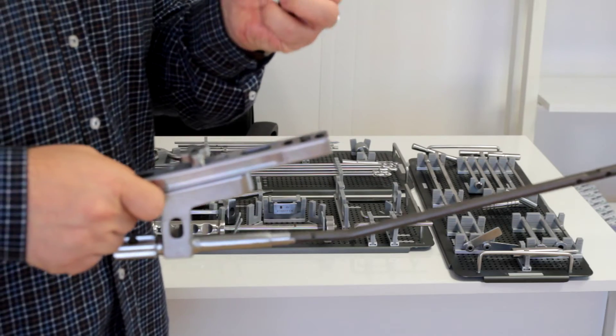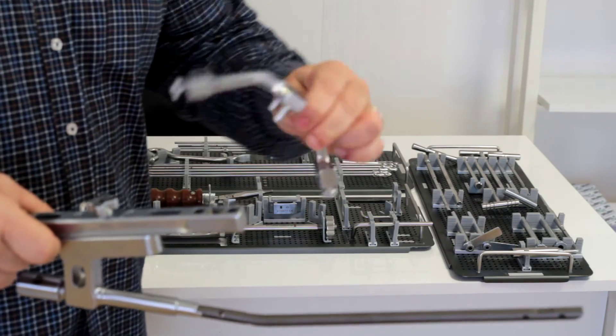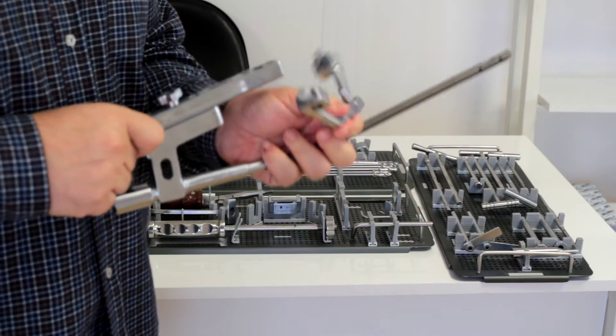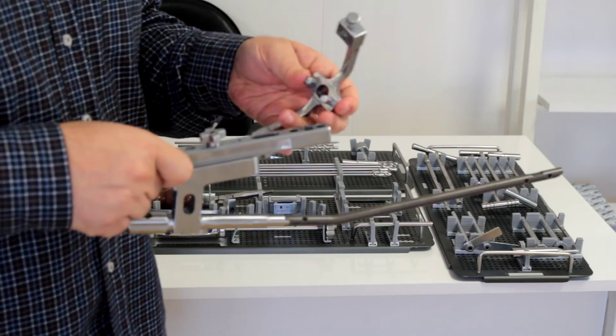Then you have to place this drill guide to it, but while mounting this one you have to be careful about this small knot here. It should be corresponding.